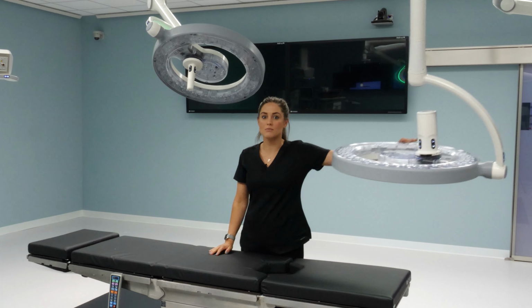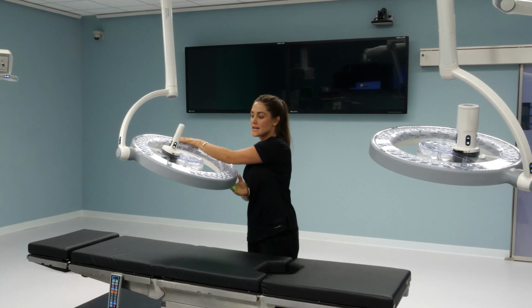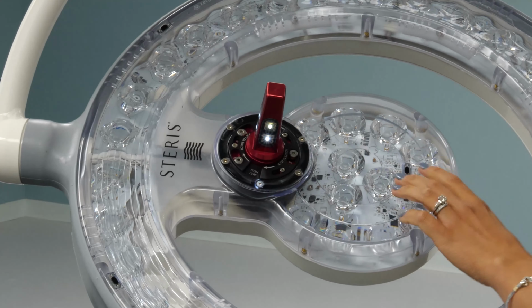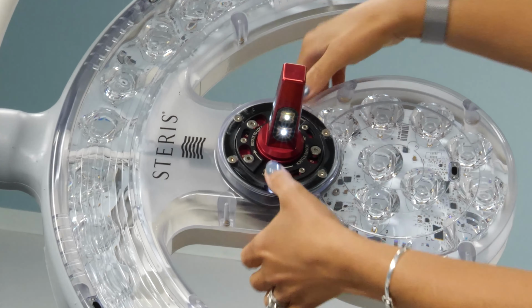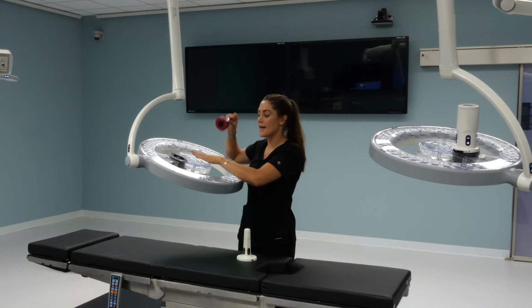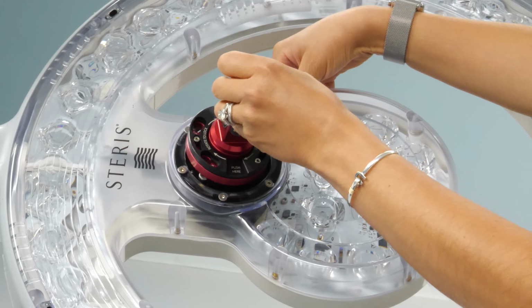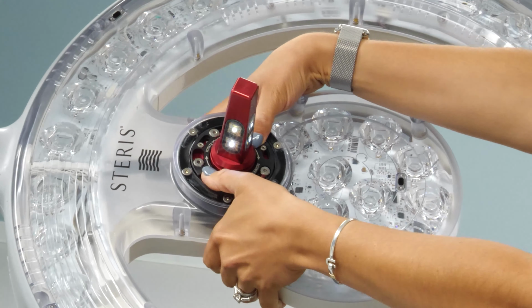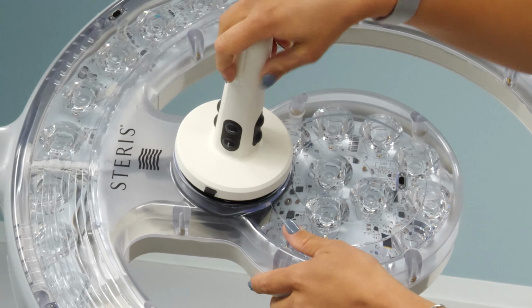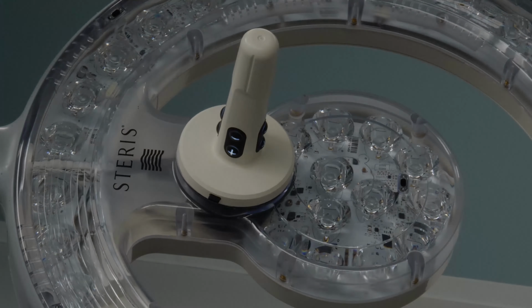Now to show you how to remove the handle so you can insert a camera. Again, I think it's easiest to flip it upside down. There's a black button on the side of the handle that you're going to want to push to remove the plastic cover. Then there are 2 buttons that say push here, push down, and twist to remove the solid core. You can then insert your camera as I showed you on the other light head, or to reinsert your handle, simply align the 3 buttons, push down and twist. Then make sure you put your plastic cover back on, and you'll notice that the buttons on the actual handle illuminate when properly engaged.